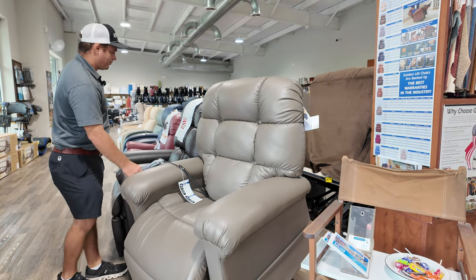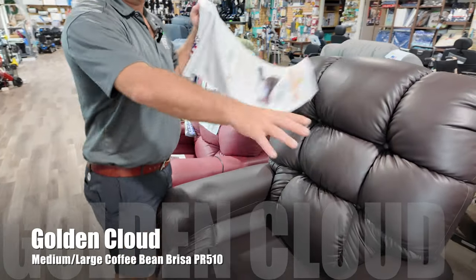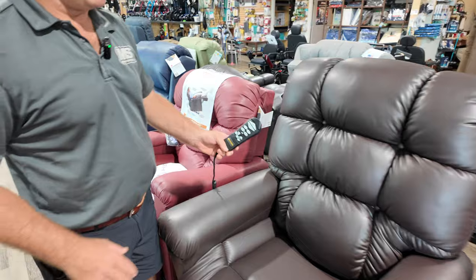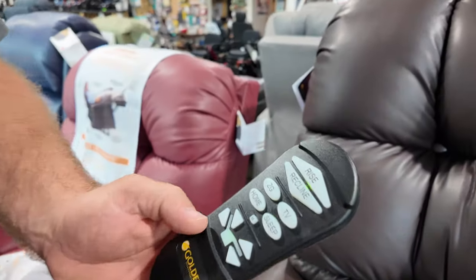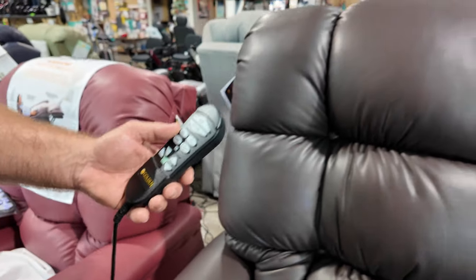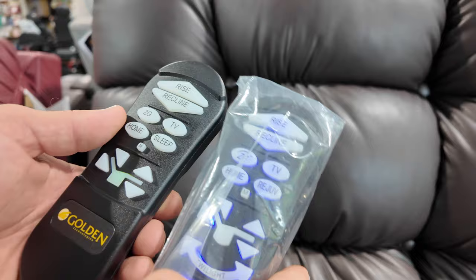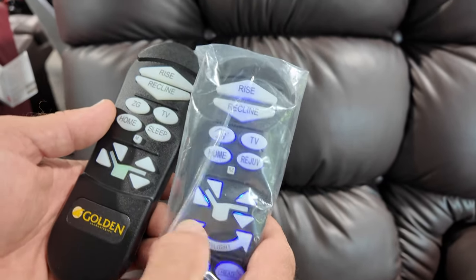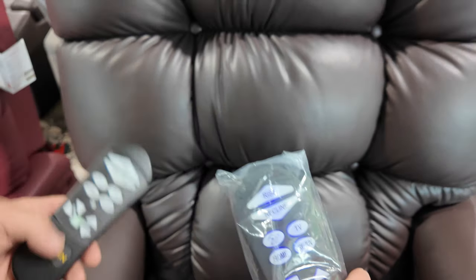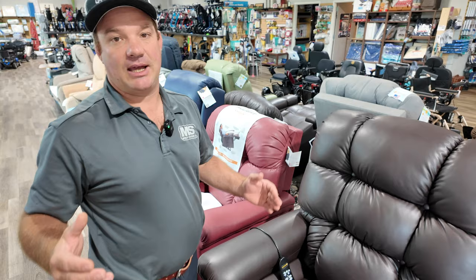It could take some time to get. Right beside it, if you're looking for a nice chair — they look the same, you couldn't tell the difference sitting down. The difference is the remote and how many motors it has. The twilight has five motors, but this has two motors. So this is just your traditional maxi comfort chair — it can put you in zero gravity. See power pillow here, twilight — the remotes look the same when you take that away.